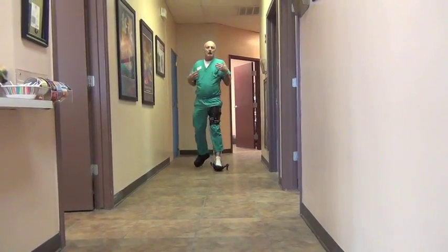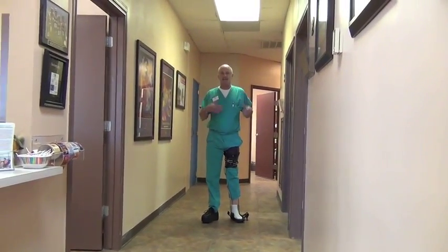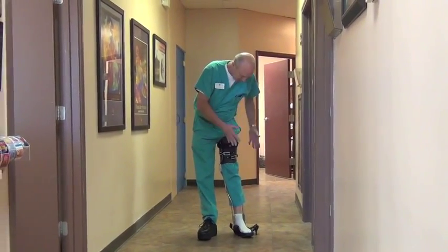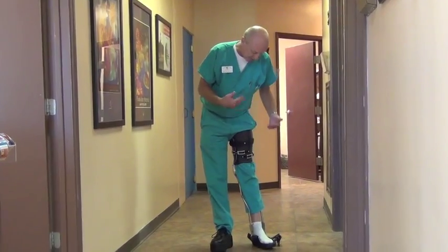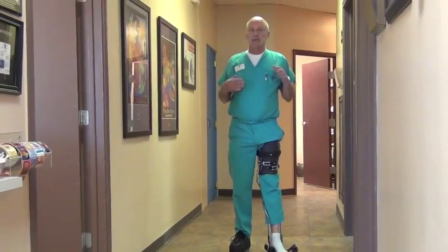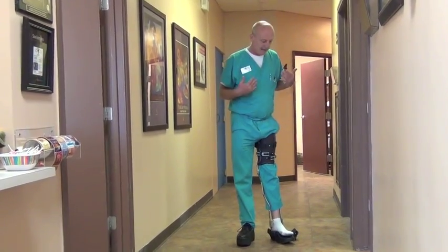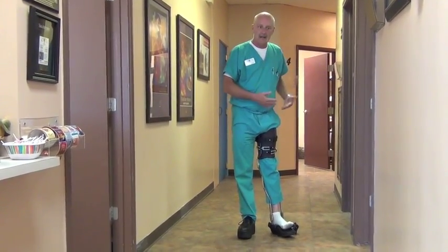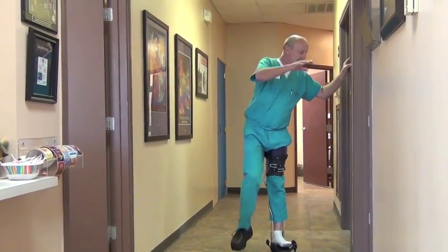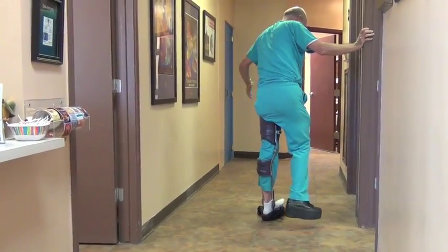What I'm looking for are doctors that would like to try this on their patients. This is a design that is new and innovative. It is a standard KAFO design, so it's not really experimental — just a different closure system. The only thing experimental is the unweighting aspect, and that is obvious to see that it works. The patient will know if it works or not, and there's no way that they're going to accidentally slip down and hurt their knees because this thing really does control.